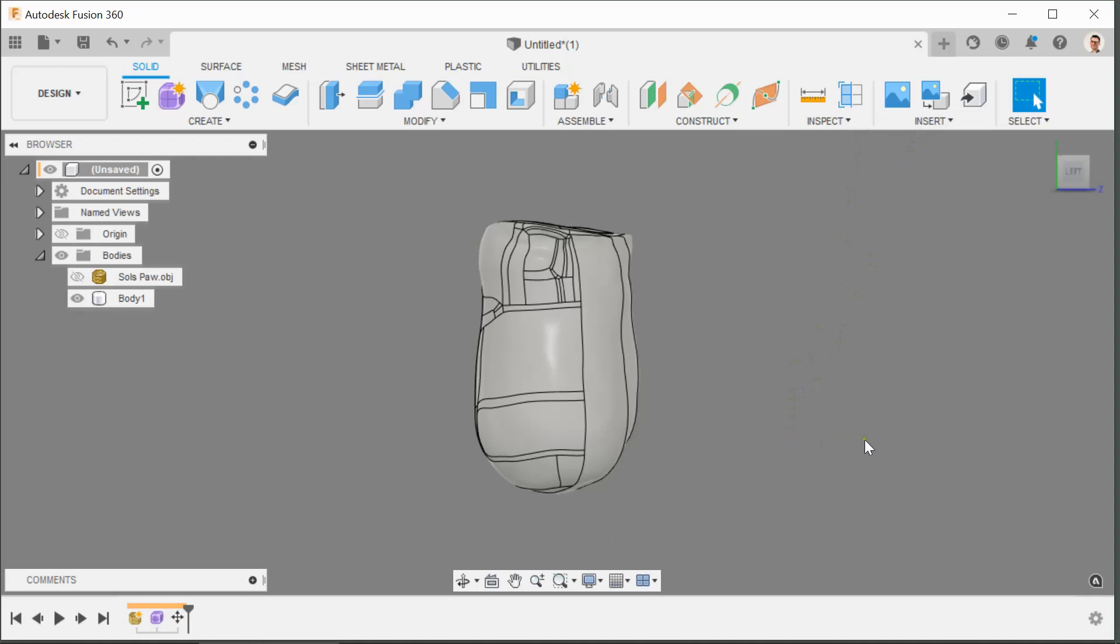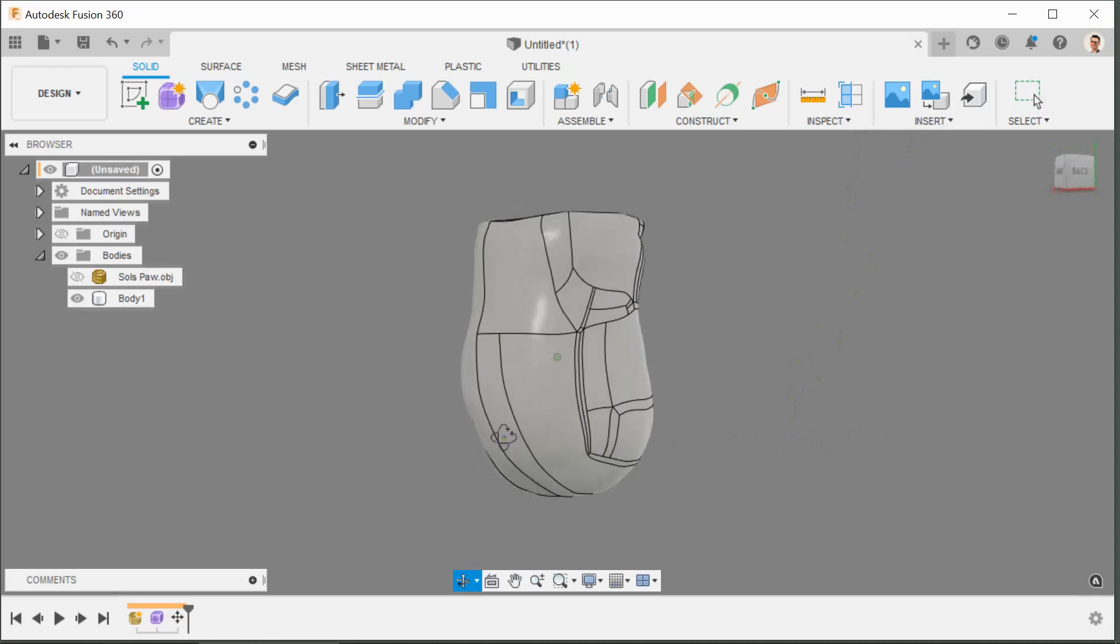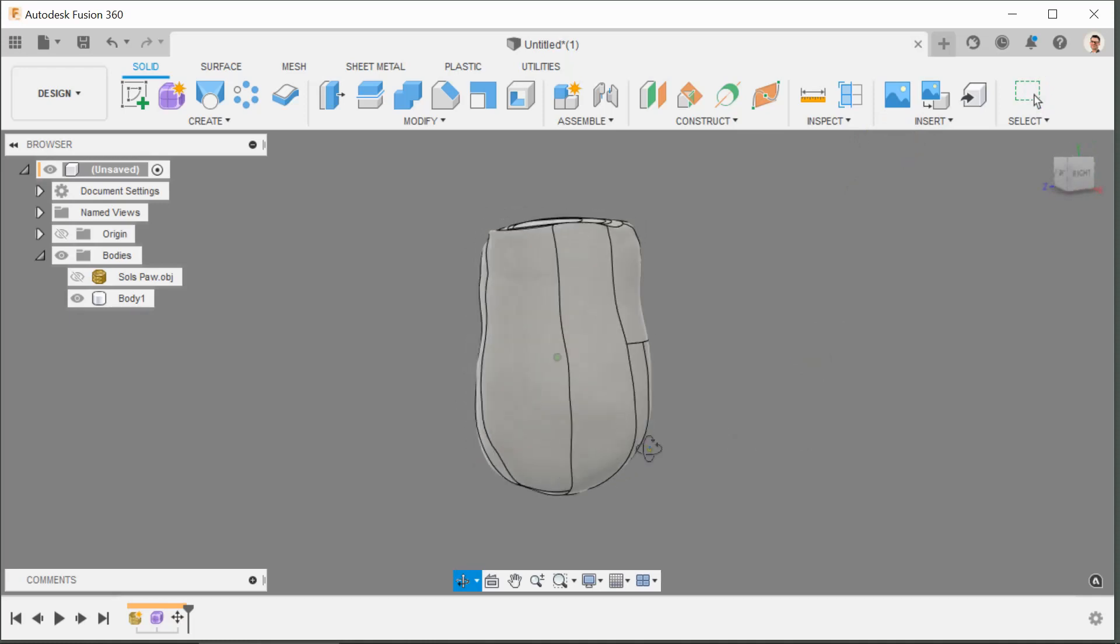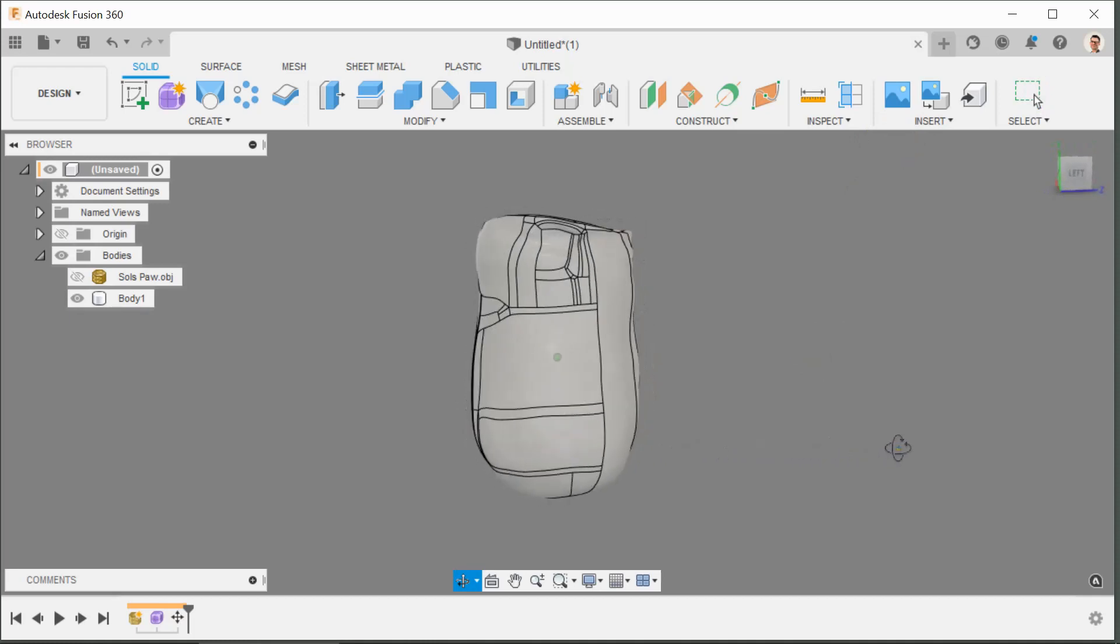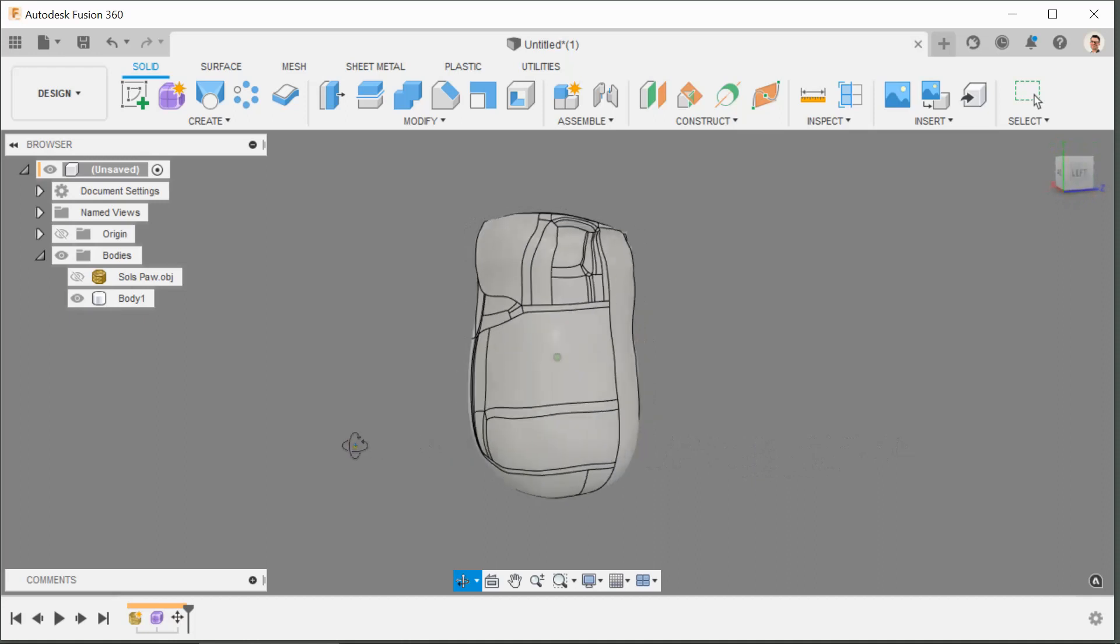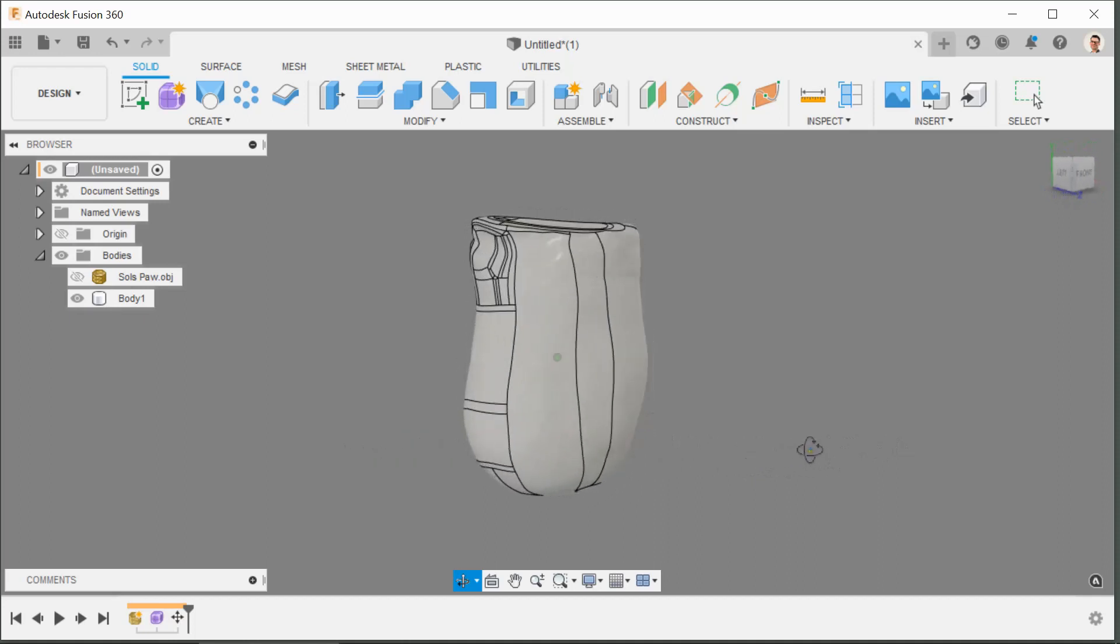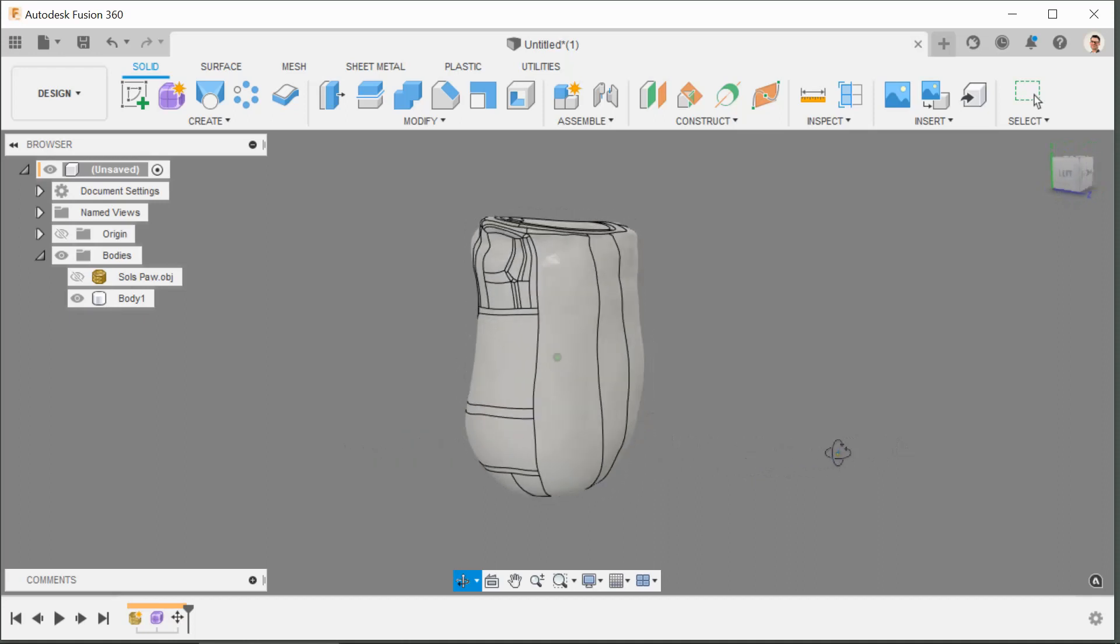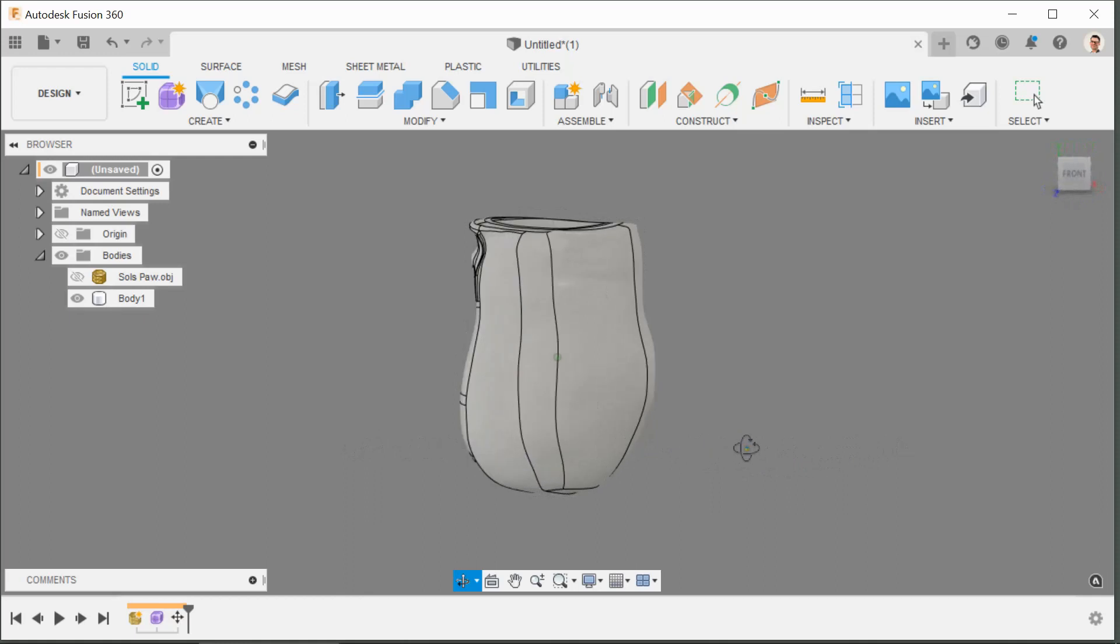Now if anybody wants them, I have a whole bunch of other scanned OBJ quads for differing degrees of limb impairment. And if there's something that's closer to the kind of arm that you're looking to make, then maybe I can help you with that. If there's any design work that you'd like to do, if there's any cleaning up 3D scan files.